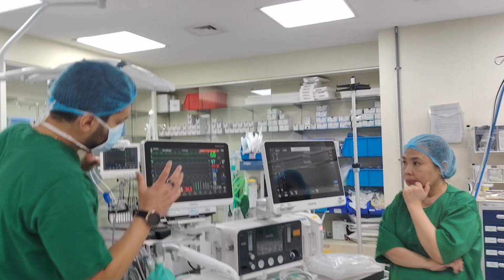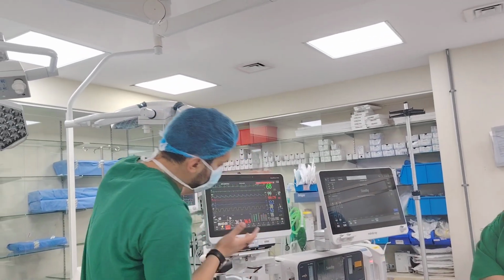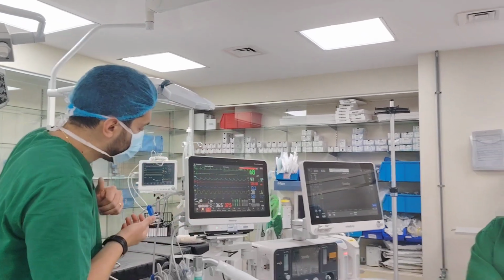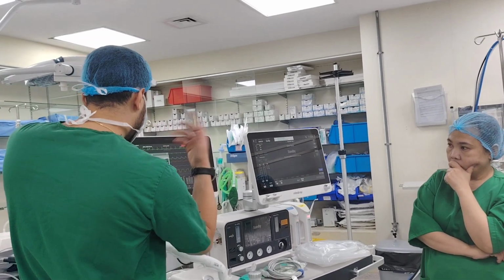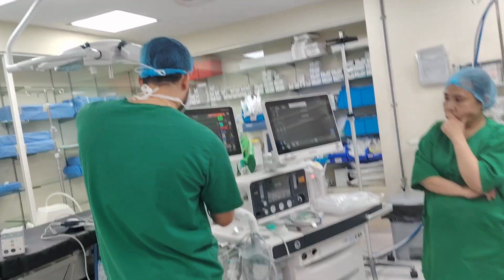Now, I need your input for the configuration. Shall I keep it like this? This is the worst case scenario, meaning if today I don't have NMT, it is taken out. I don't have BIS, it will be no BIS. So how it looks like, look. So let me show you how, and maybe the temperature also, you will not put the temperature all the time, so it will look like this.